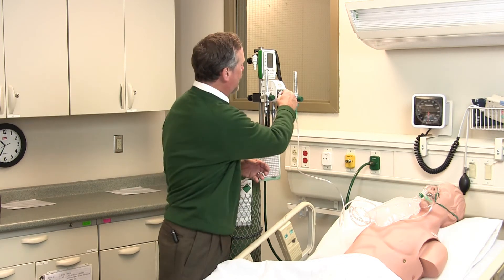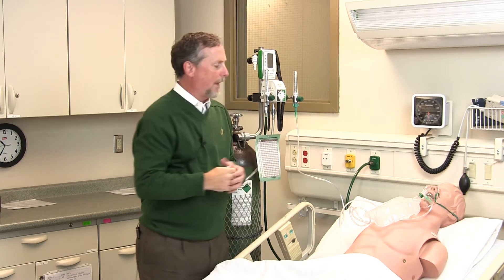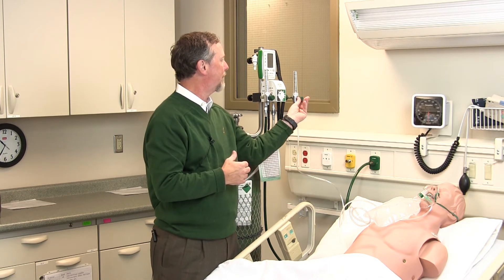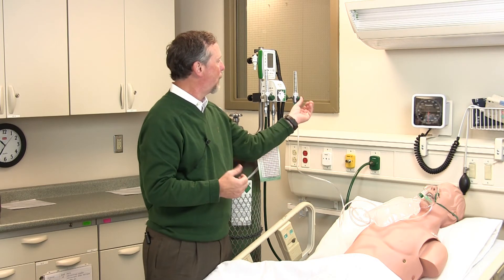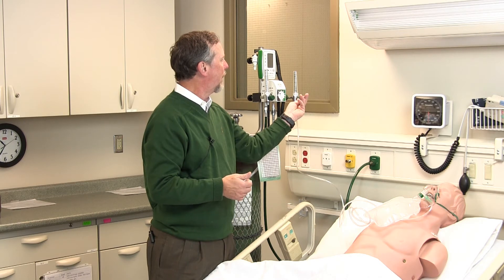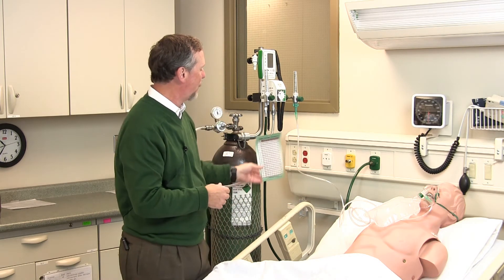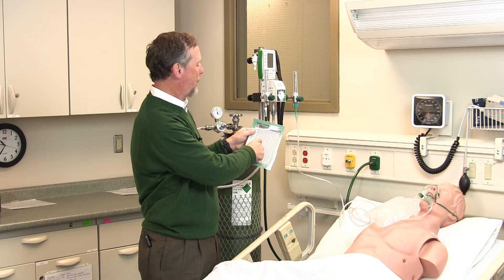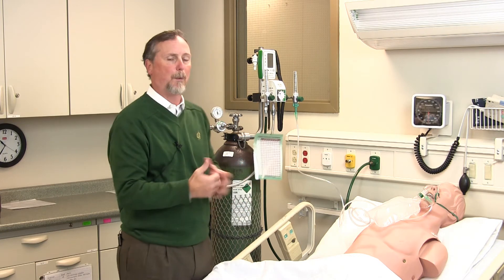In this case, we're going to use 40% oxygen. As I turn the FiO2 down to 40%, you can hear the flow change. We have our flow set at 10 liters per minute on the flow meter, which is a total flow of 15 liters per minute to this non-rebreather. Of course, if the patient's minute volume or inspiratory demand is high enough, we want enough flow to keep this bag inflated. If we need to increase flow, we can turn up the flow meter — say to 14 liters per minute — which yields a total flow of about 20 liters per minute to the patient.